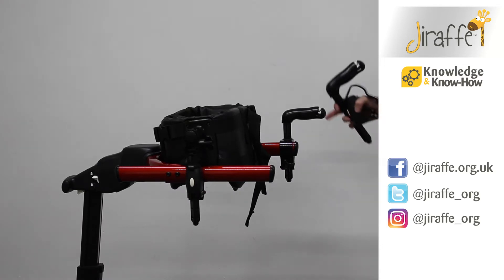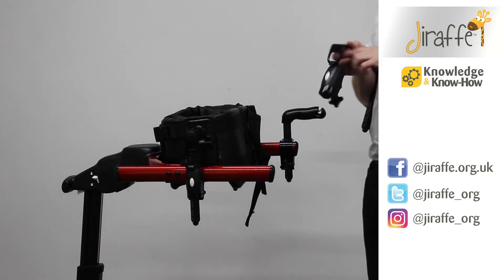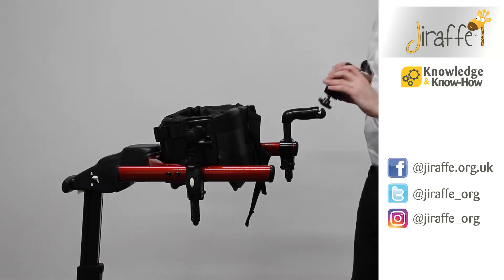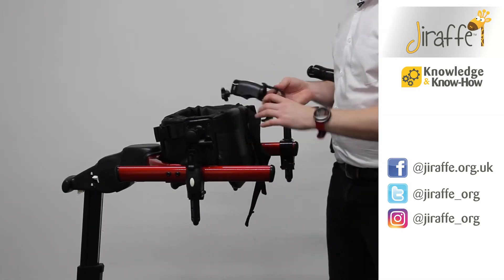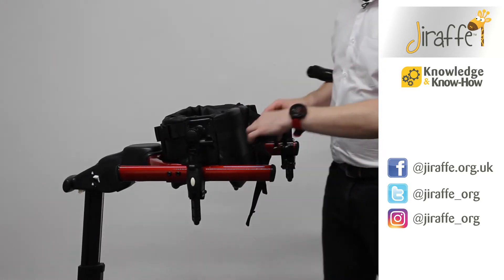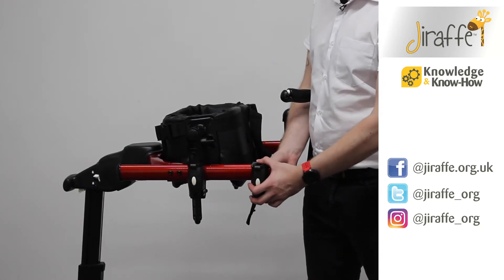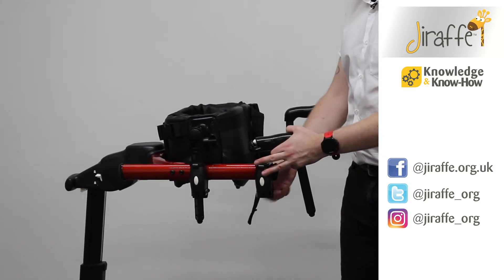As you can see, we've already got one on at the moment. We need to fit the clamp into place, ensuring that the wing knob is nice and loose. We can fit the clamp on the outside of the frame or the inside of the frame. So once we're in place, pop the clasp down, and we'll be able to lift the wing knob up and then tighten it.